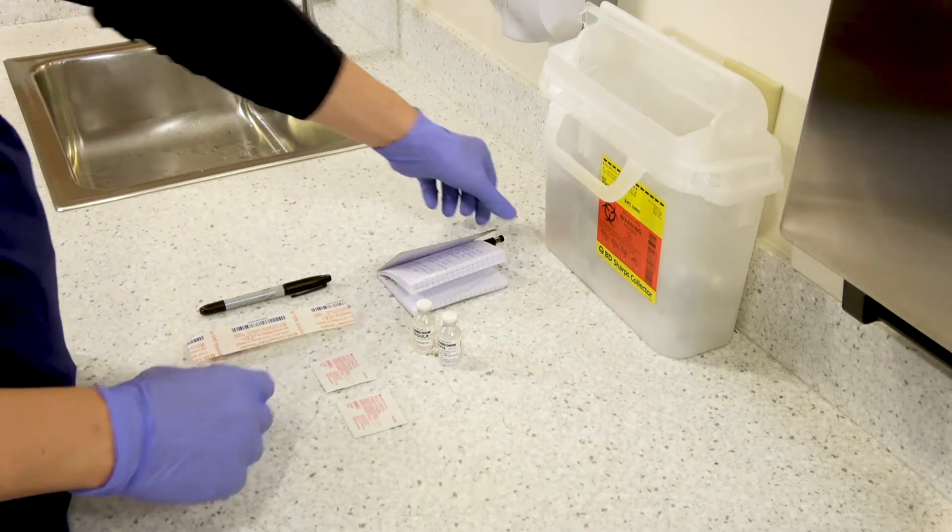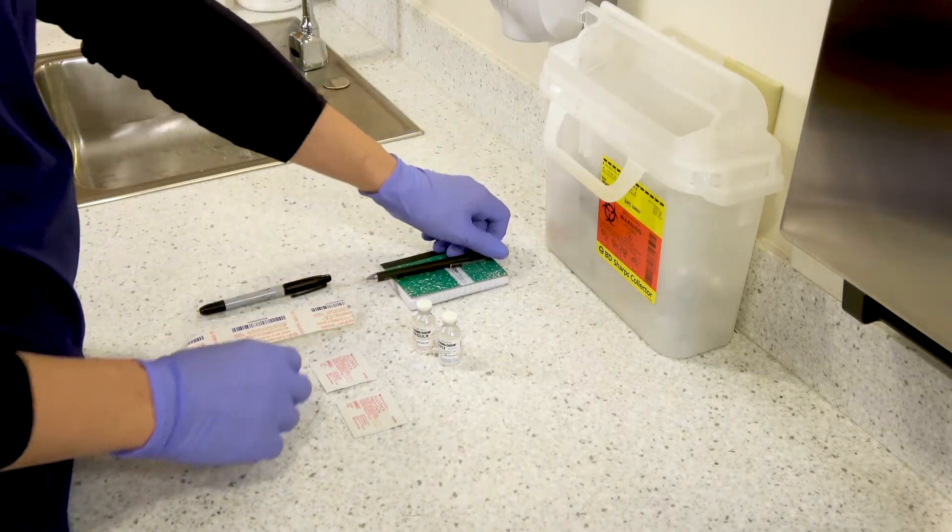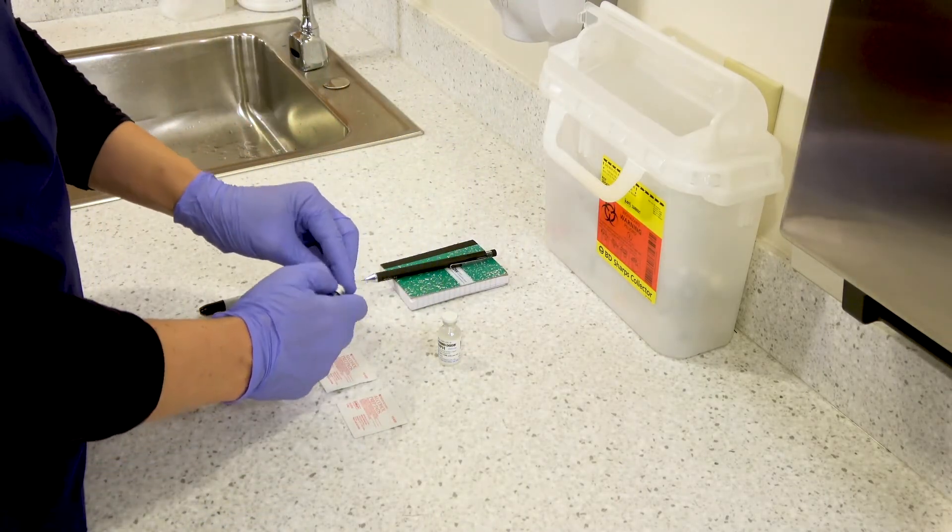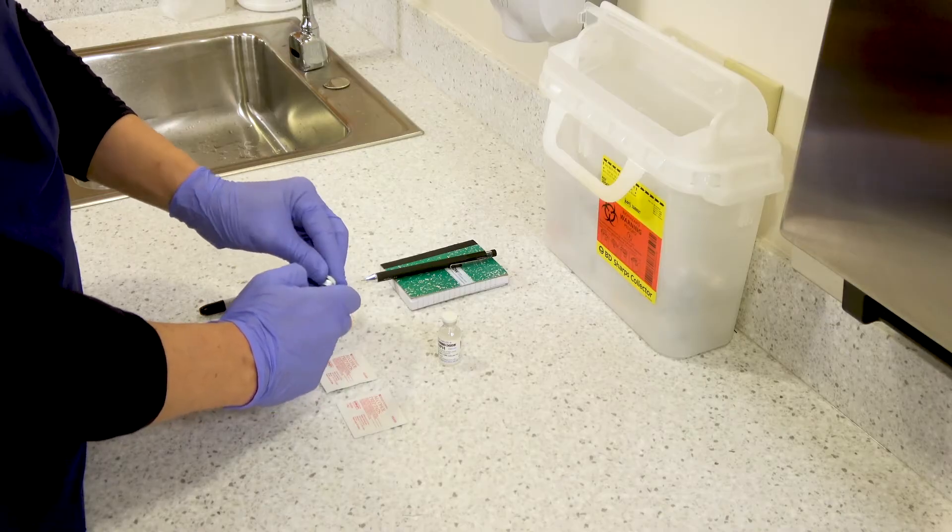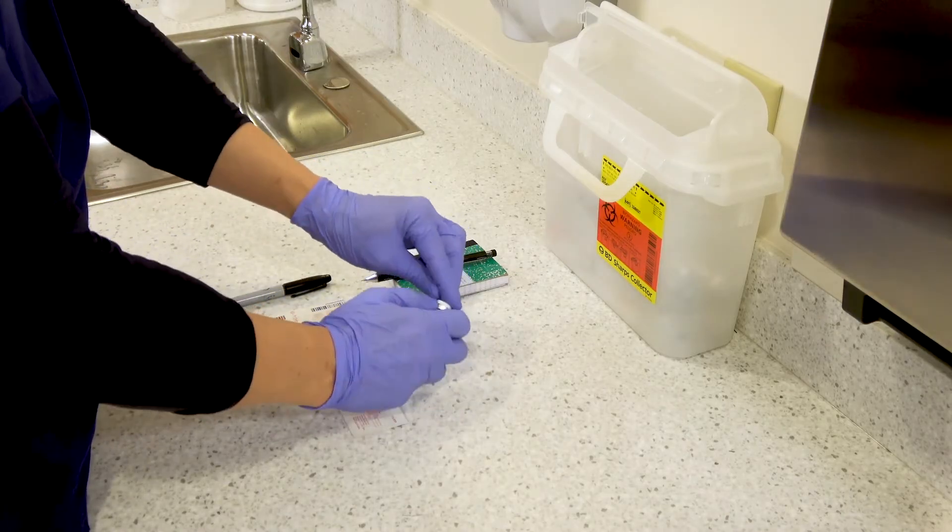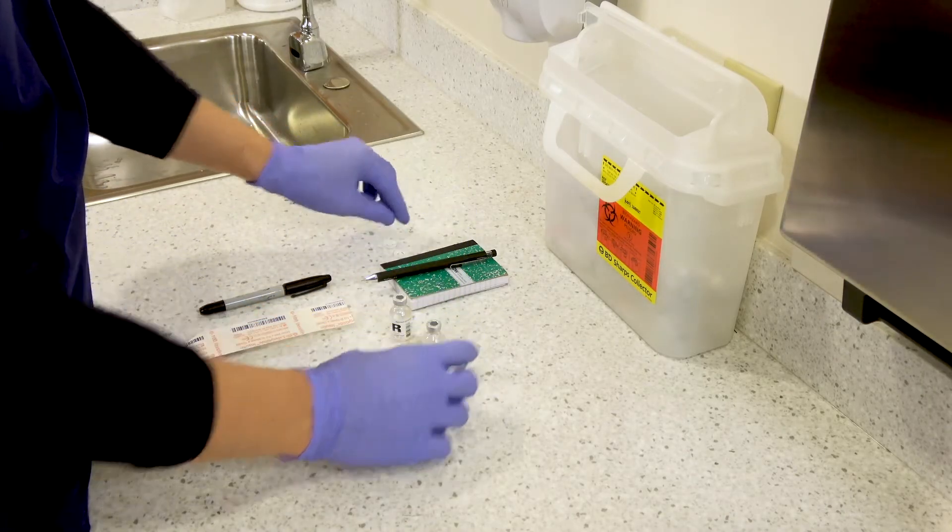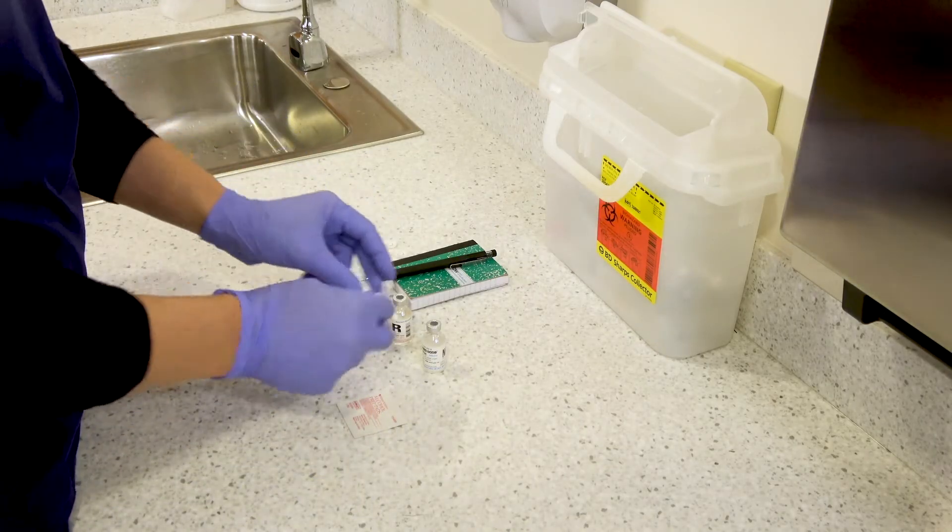So the first thing you want to do is open both vials and clean the top of both vials with an alcohol pad. To avoid contamination you can use an individual alcohol pad for each one.